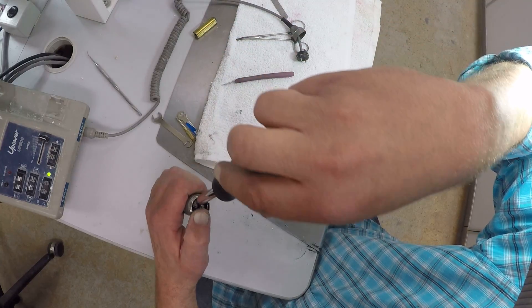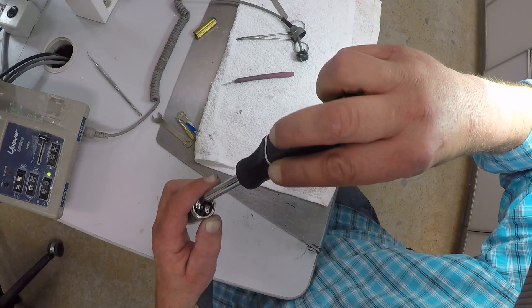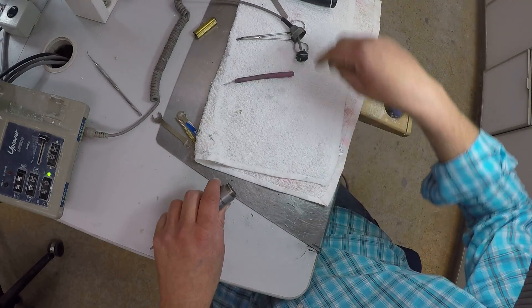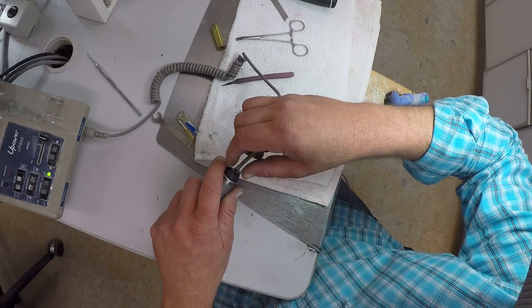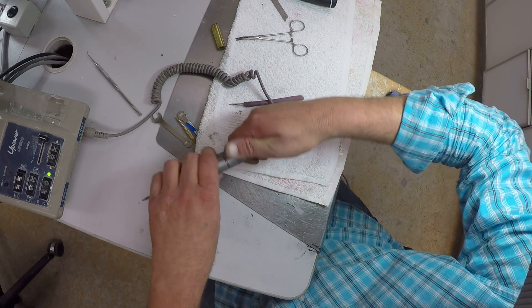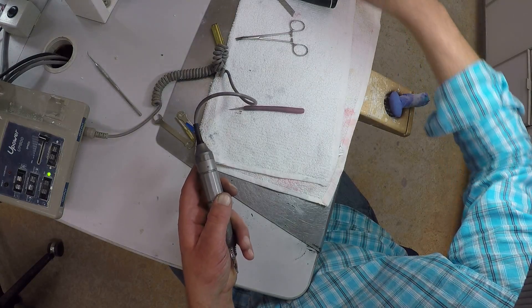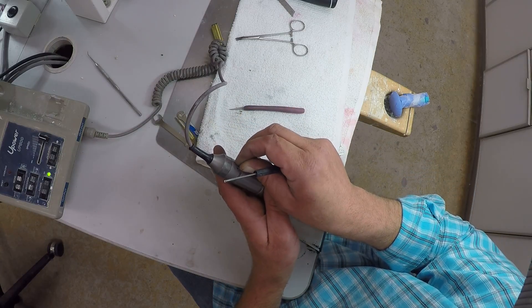Put that back in there. Make sure it's nice and tight — not too tight, I don't have to crank it down, just tighten it up. Put it back together. I have to match positive on the outside and negative on the side, snap it back into place, screw this back on, and put that little tiny screw right there back into place. Use the eyeglass repair kit or one of the implant drivers.